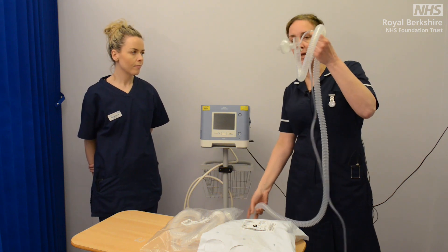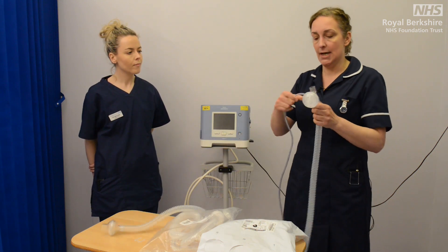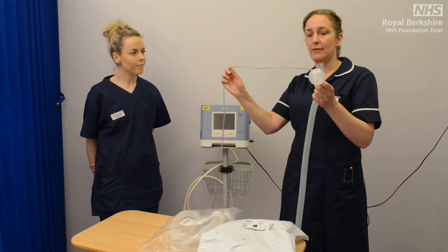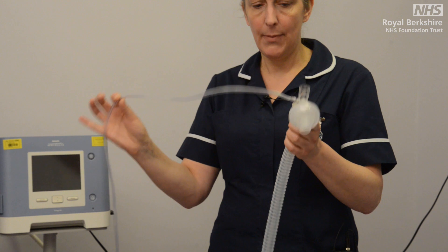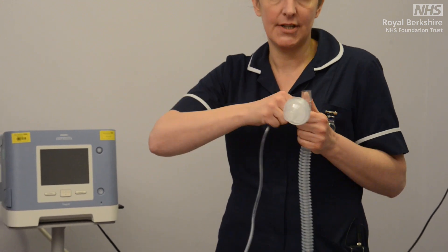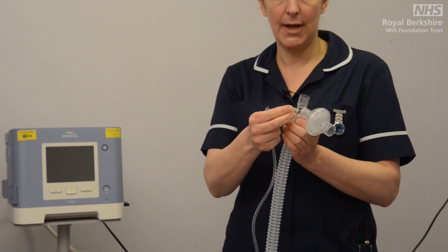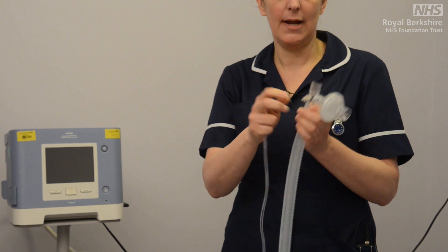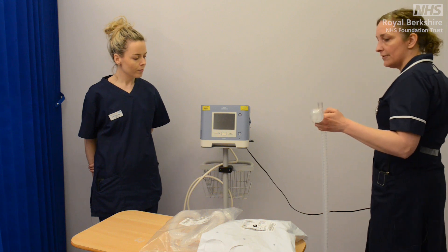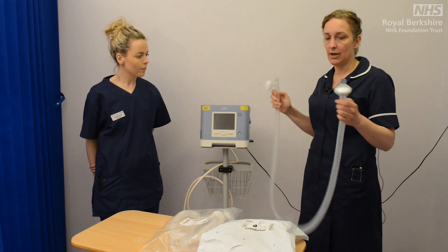In order to make sure that our tubing is compliant with the CPAP and BiPAP settings, you will notice when you open the packaging that there is this additional piece of tubing here. For our purposes we do not need this, so the simplest thing to do is give a good pull and remove that. You then have a very small cap here which you can place over that port. We can now discard that piece of tubing and we're left with our ventilator tubing that we're going to need for our patient.